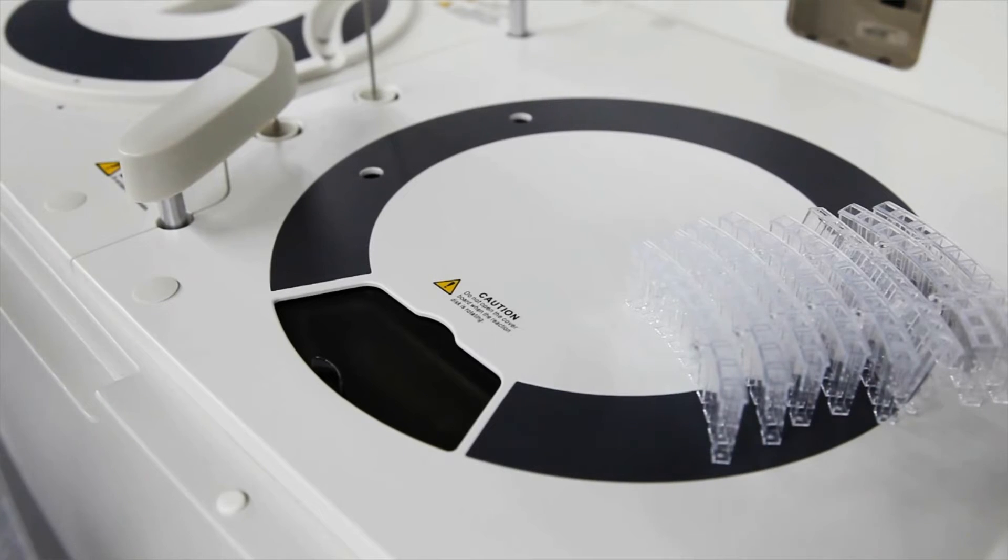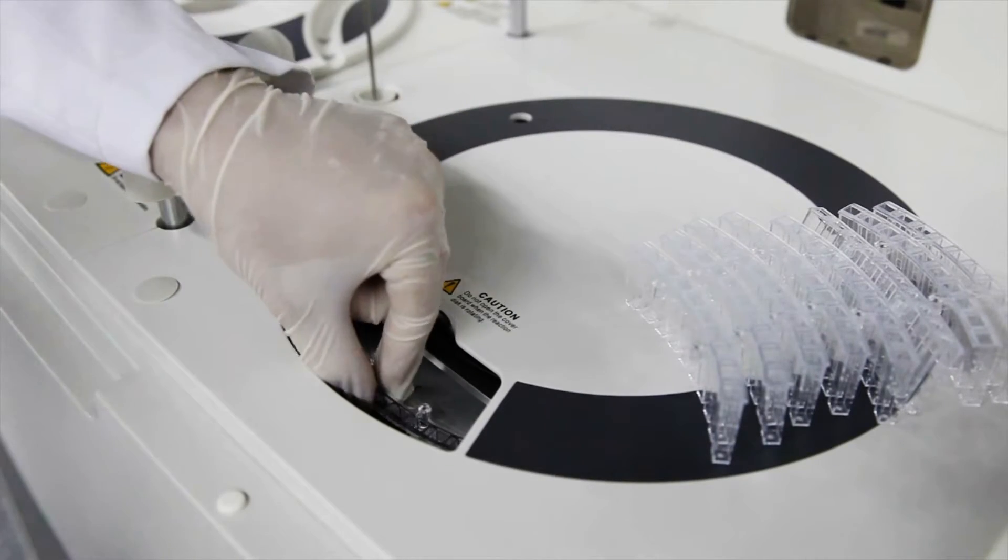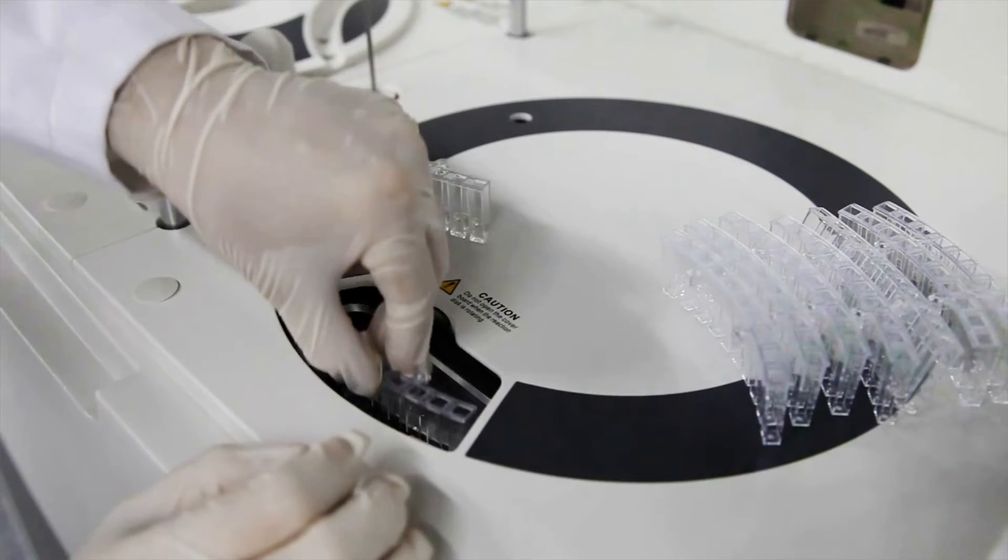The reaction carousel holds up to 80 high-quality disposable cuvettes, therefore eliminating the need for a water filtration system. This feature eliminates potential carryover that may compromise patient test results.